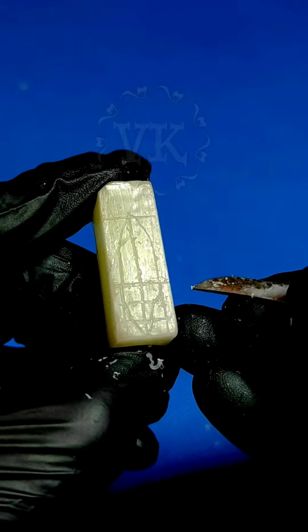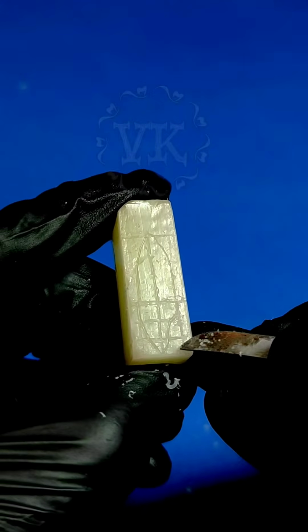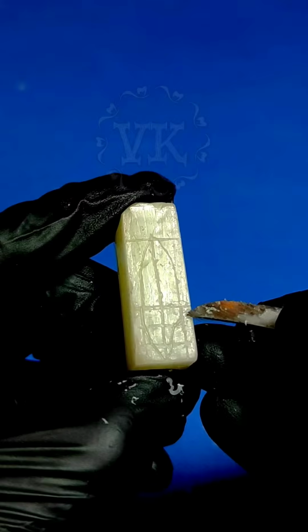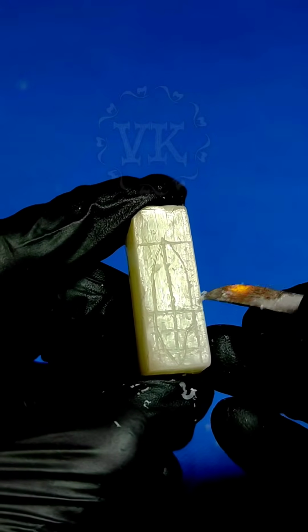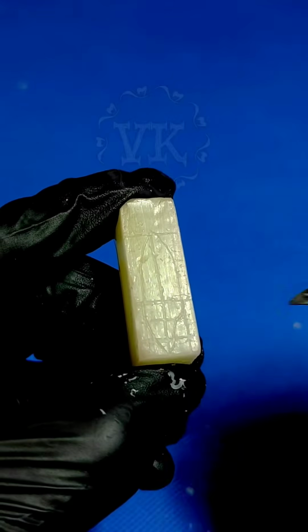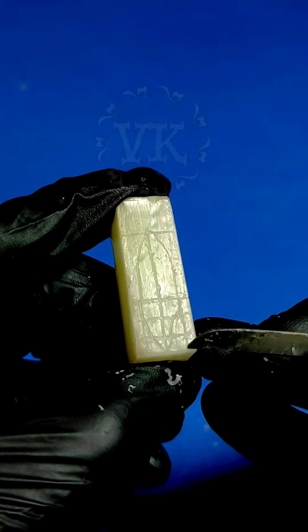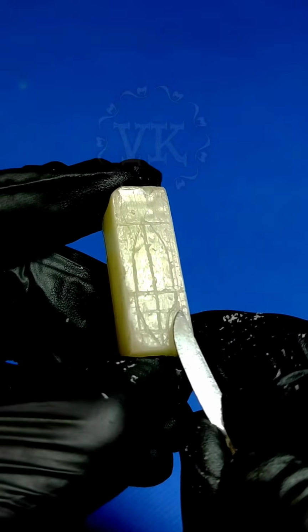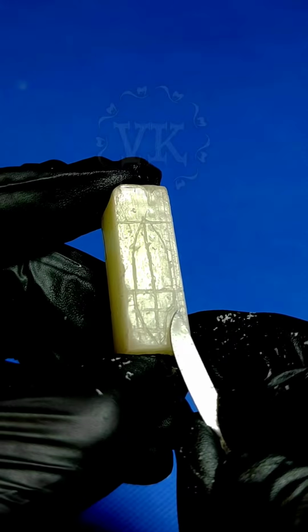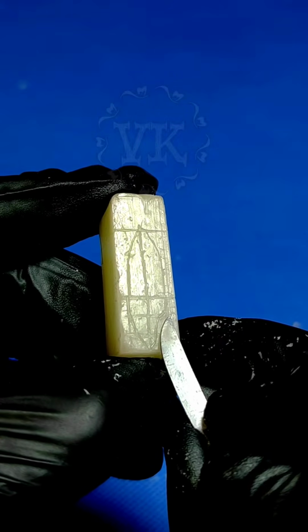So now we have to remove all the wax that is lying outside this outline, all this wax, this and all of this. That is what we are going to do. So first I will concentrate on removing this side. If you notice, the concave outline is actually matching with the carver. So I can use this curved surface of the carver to create this concavity.